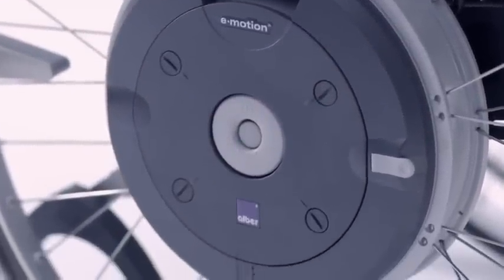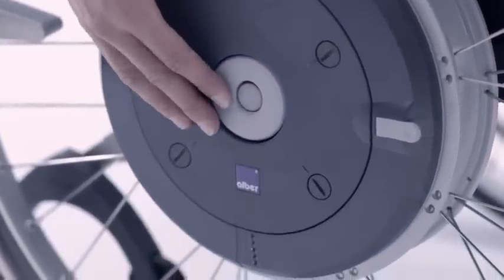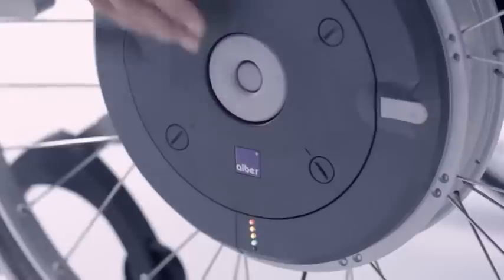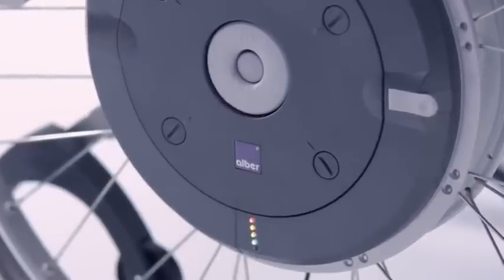E-Motion can optionally also be switched on and off on the wheel if required. The battery monitor reliably informs you about the current battery status.